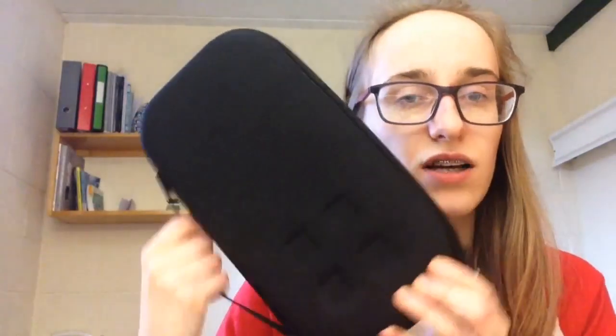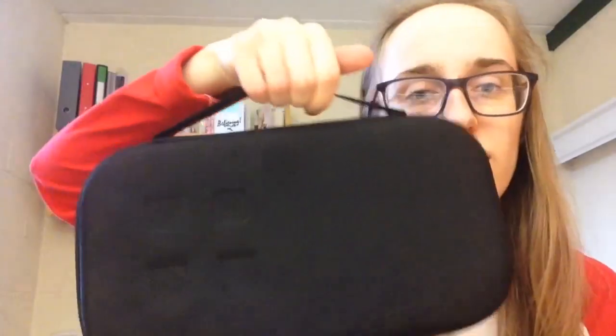I've already opened this — it's my stethoscope case. I went for black because it's got a nice cute little handle. I don't know if I'll use it, but they were selling them at half price with the stethoscope, so I thought I'd buy one now. EBay actually worked out the same price as the half price here, so I just thought buy it while I can. It's the Medisave Ballistics Classic stethoscope case.